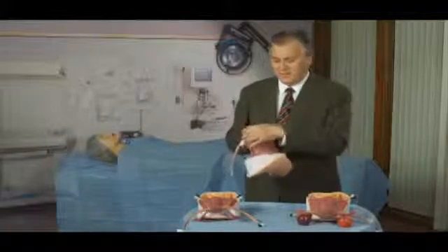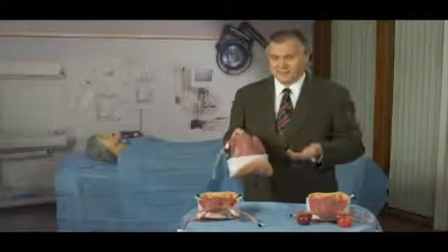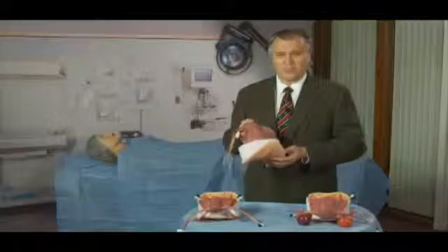the uterus. Then the learners can do an ectopic pregnancy. Then the learners can remove the dermoid. Then the learners can do a hysterectomy. Maybe it's going to be an abdominal hysterectomy. Maybe it's going to be a vaginal hysterectomy with morcellation. In this fashion, at least 4 uses from this one uterine assembly should occur.